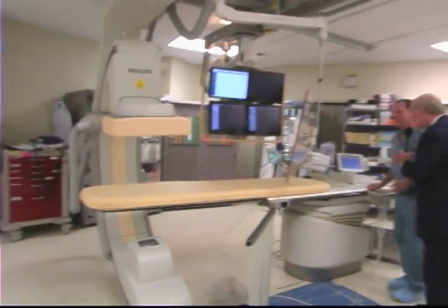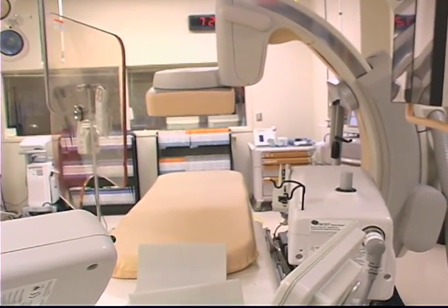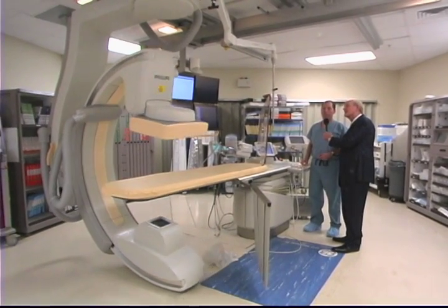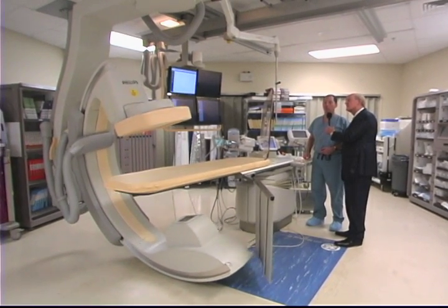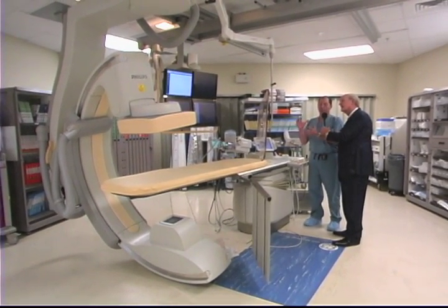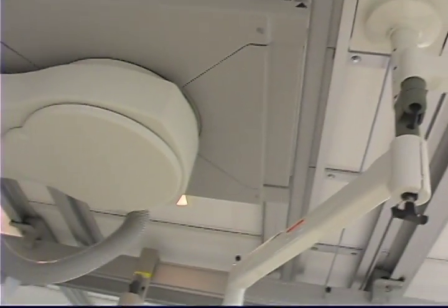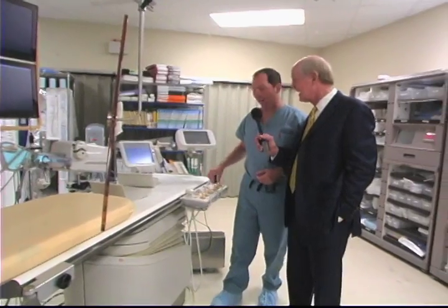Show me your floating table. Sure, I think this is amazing. So the person is lying on their back typically, and this is called a floating table. And between the table and the image intensifier, which is the x-ray equipment, we can get any number of projections in order to see the heart arteries, because the heart arteries are in a beating heart and extend over the surface of the heart like a root system. Do you have to be good at Xbox or PS3 to work this machine? We have a little toggle down here — probably my children may do better than I do.